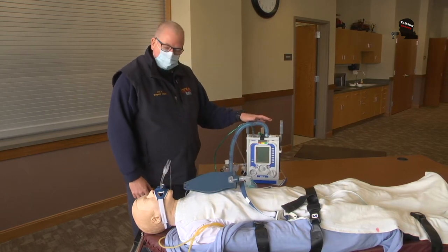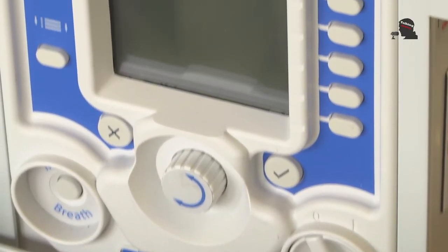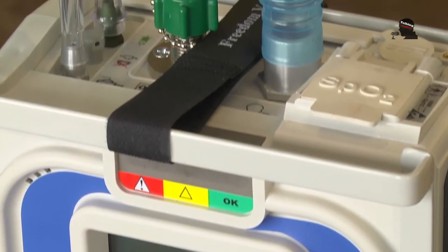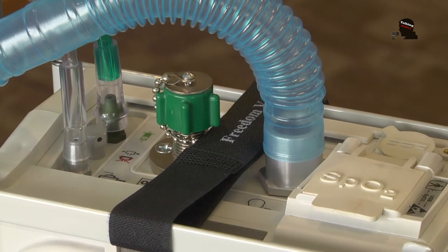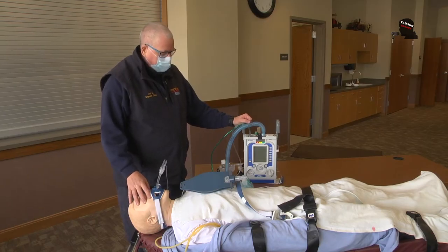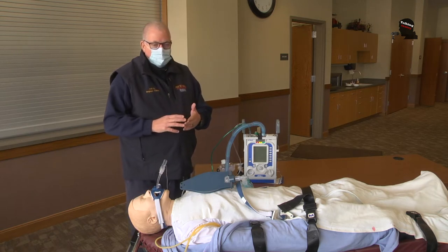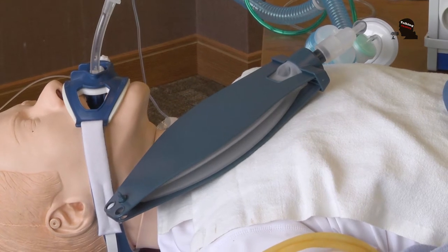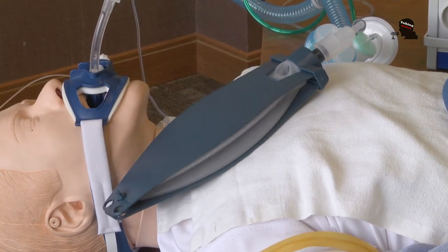Today I wanted to show you the Z-Vent that we got from Zoll Medical. These are currently on each of our frontline ambulances — two in Fitchburg and one here in Verona. We've used it a couple of times already. The vent allows us to provide a consistent number of breaths per minute, tidal volume — the amount of air that goes into somebody's chest — and the percent of oxygen.